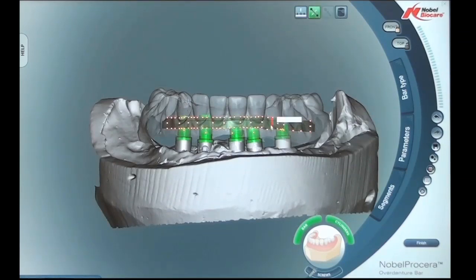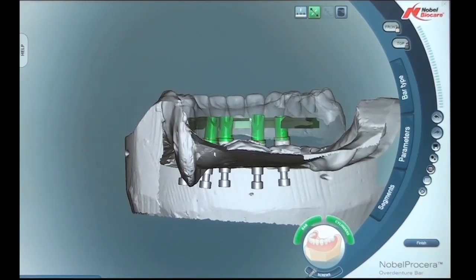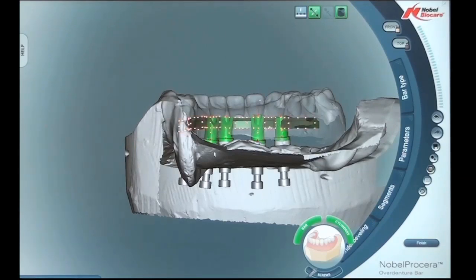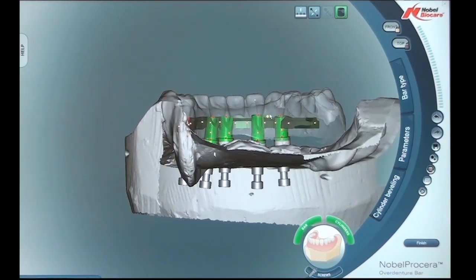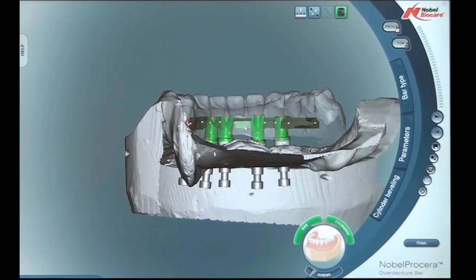By clicking onto the bar segments, we're able to bring in all the markers on the top and bottom of the bar and manipulate it in any direction with those markers. Now we'll focus on the cylinders. Notice that the lingual segment of the cylinders are beveled. By clicking onto the bevel segment, this allows us to bevel the cylinders — instead of the cylinders being fully 360-degree round all the way to the top, we can use this feature to manipulate the cylinder on the lingual version up and down. We're also able to rotate the cylinders on the 360-degree axis to position the cylinder in the best favorable position to allow for maximum tongue room and avoid over-contouring on the lingual.